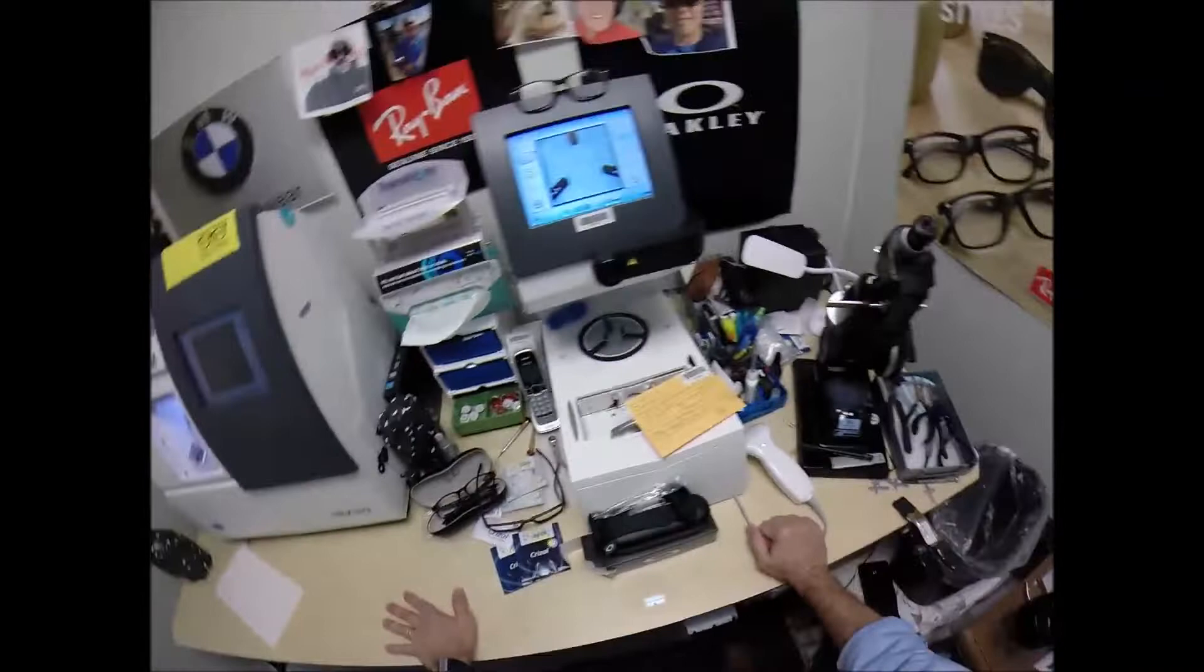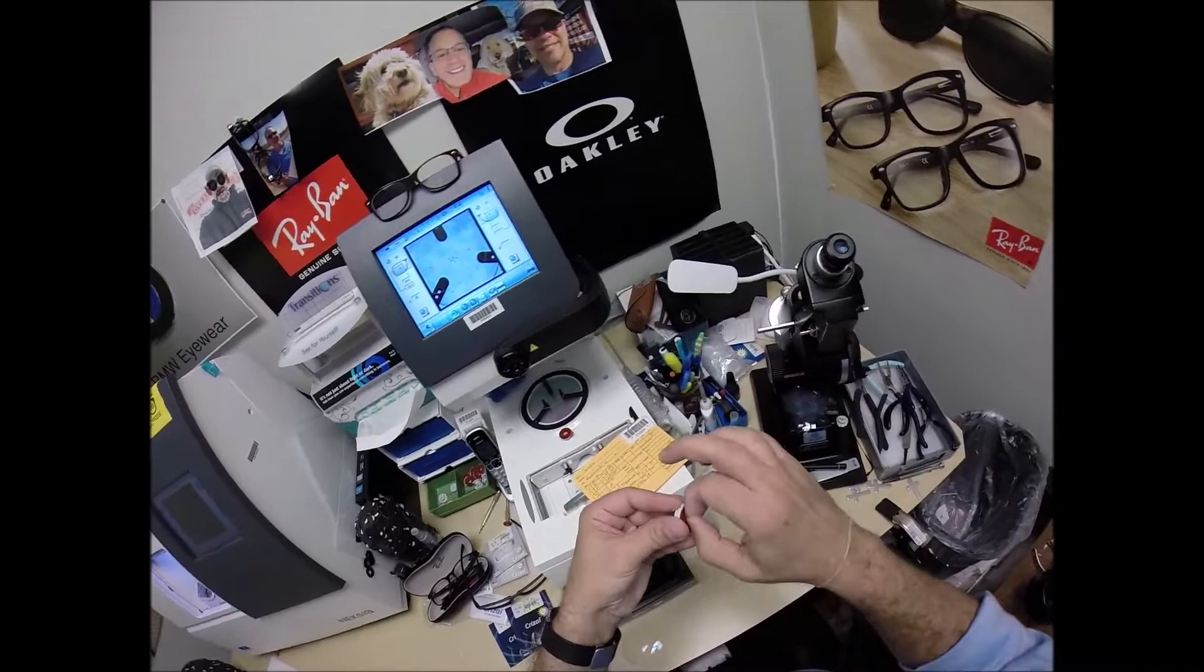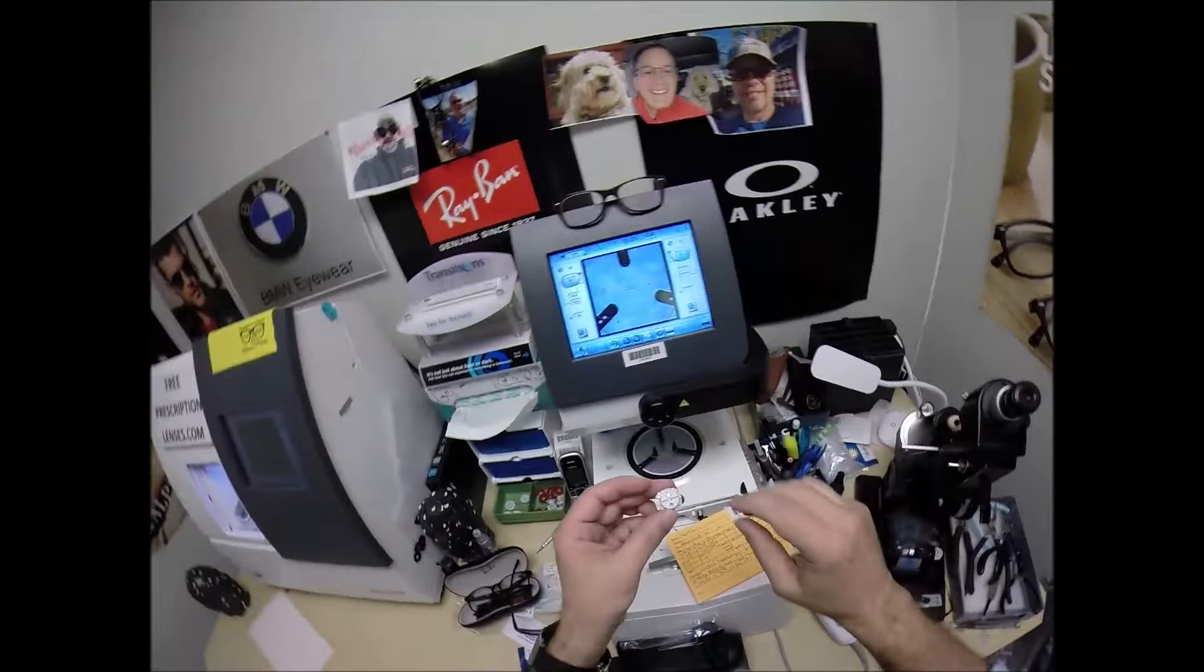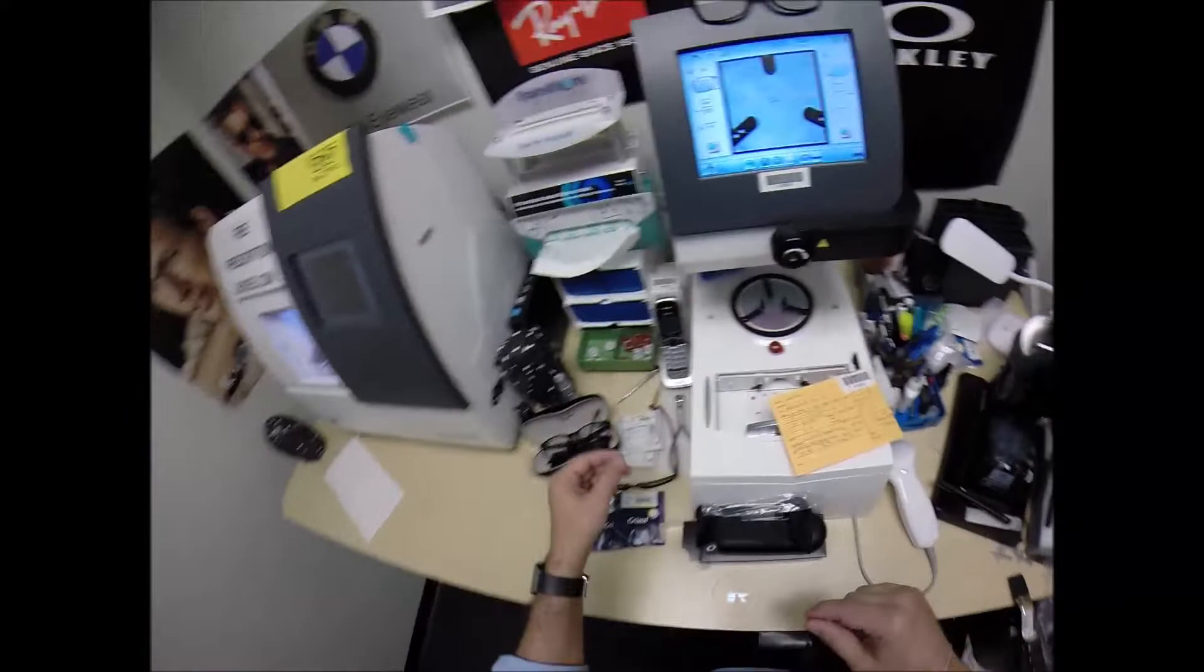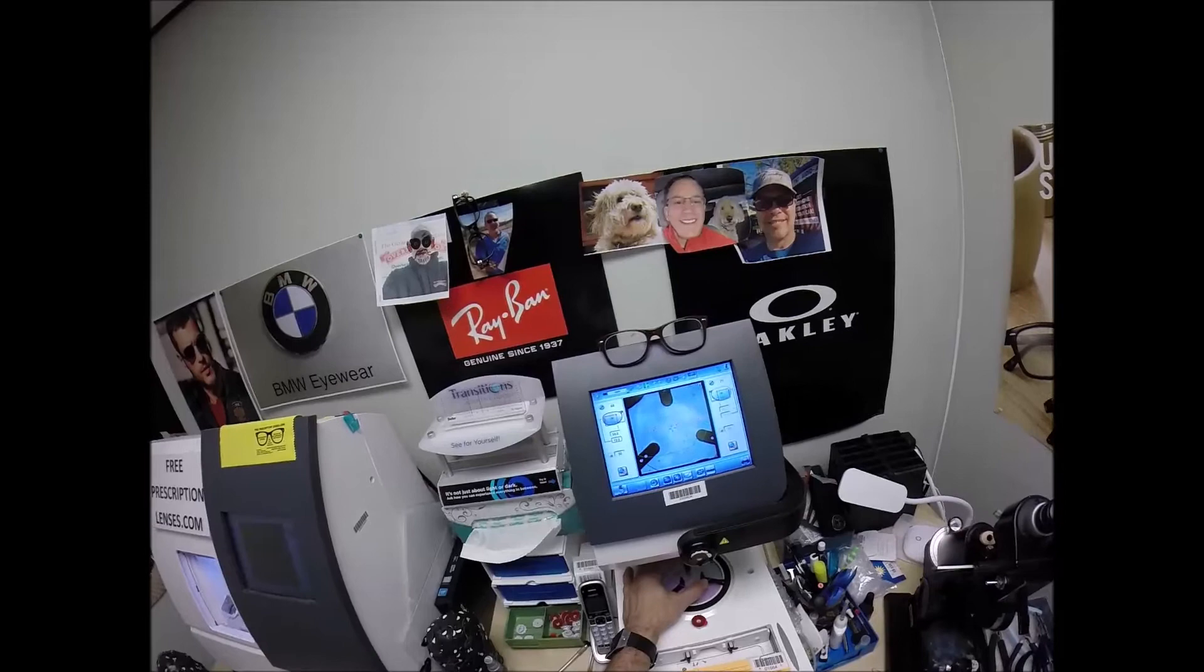This is the blocker. I need to attach two double-sided adhesive stickers to these while they are cutting in order to get them to cut. So, I'm going to put that sticker on the first block, do the same thing now for the second one. Pull the paper away to make the black side sticky. On the back is a silver button that is a magnet that's going to line up with the magnet there in the chuck of the arm. The reason why I put those three dots on there, it tells me that it's oriented in there just perfectly.